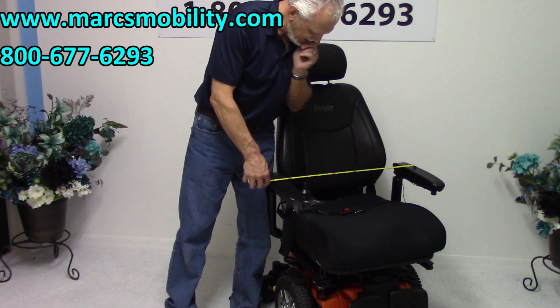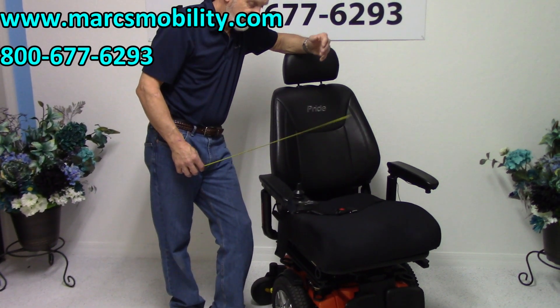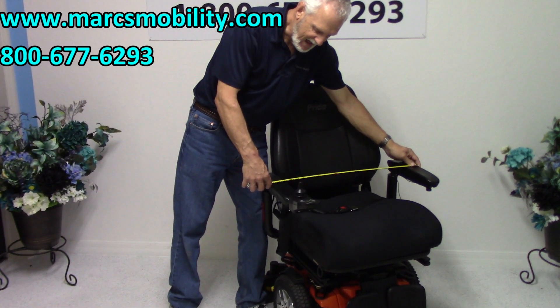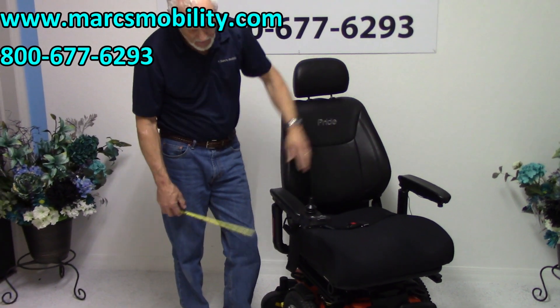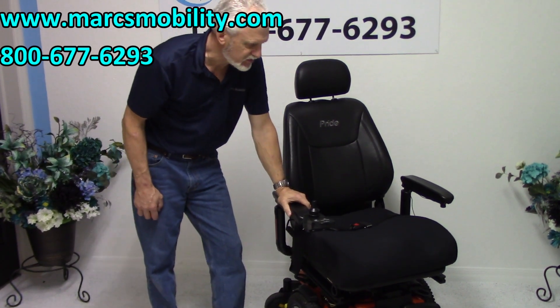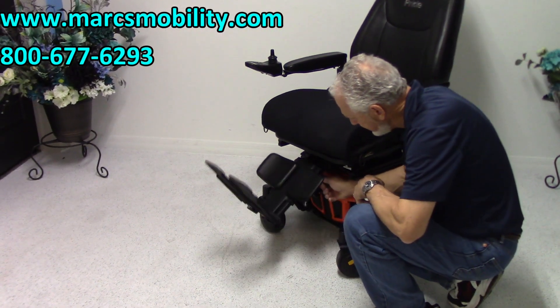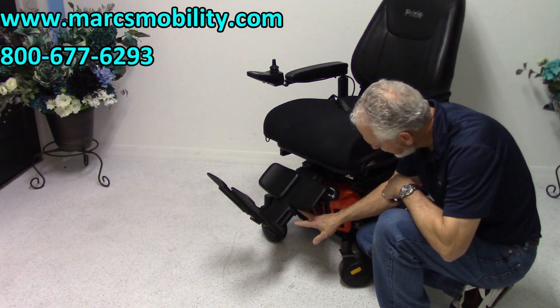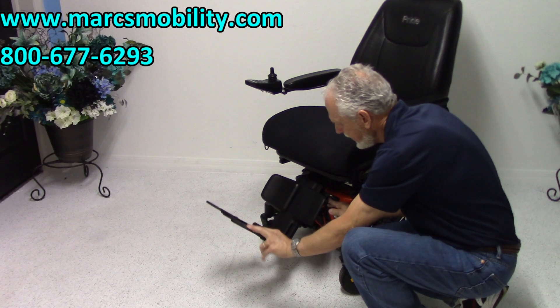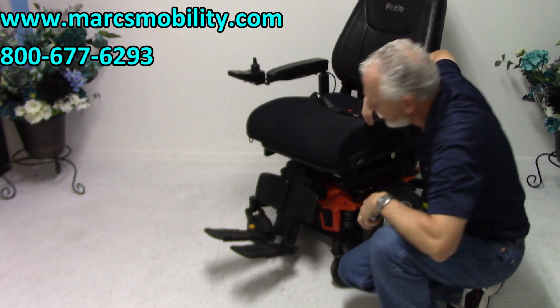So if you're a large person and you need a decent chair with a seat lift, a nice 21 by 21 seat, and you have doors that are more than 27 and a half inches, this is going to be a really nice chair because it has the lights, solid tires, flip-off arms, the captain's seat, the drop stand at 33 inches for transportation. The legs in front are manual, but there's a lever — you can adjust them and also adjust the length manually with two screws. The only electric feature is the 12-inch seat lift.